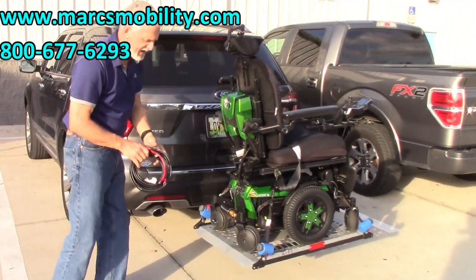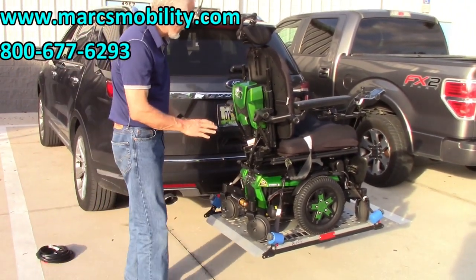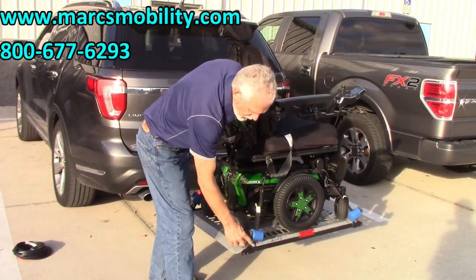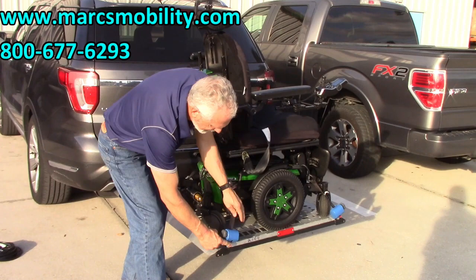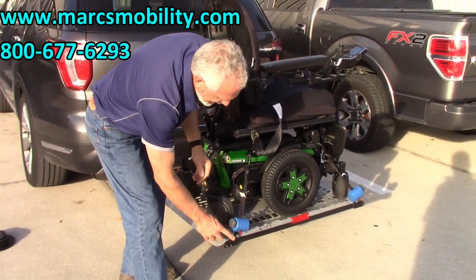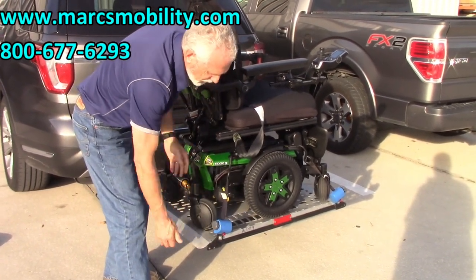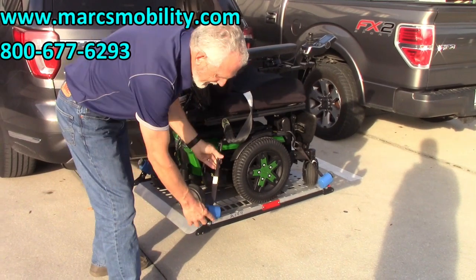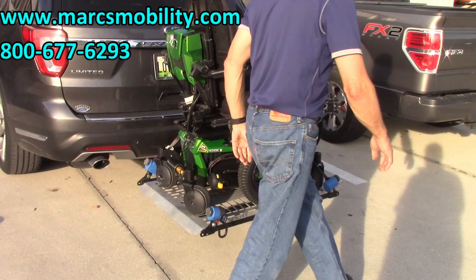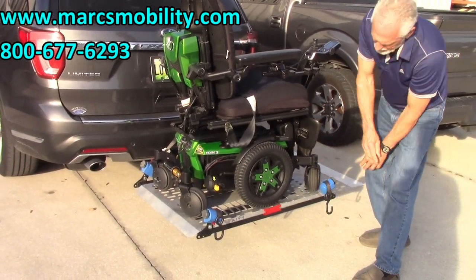Let's bring the chair down. When the chair is up in the air, you can pull the straps. When you pull the straps off, they're stuck in — you have to push the red handle in. You can see it's on a spring and it tightens itself. When you put the strap on, just give it one or two cranks, nothing more. To get the strap off, push the handle and let it go on the outside.